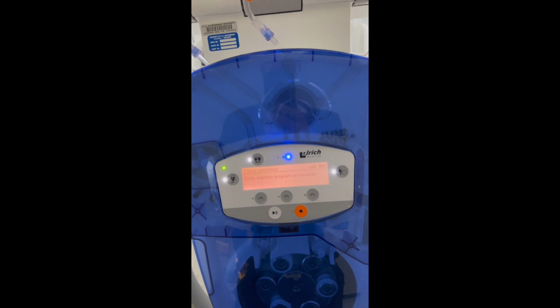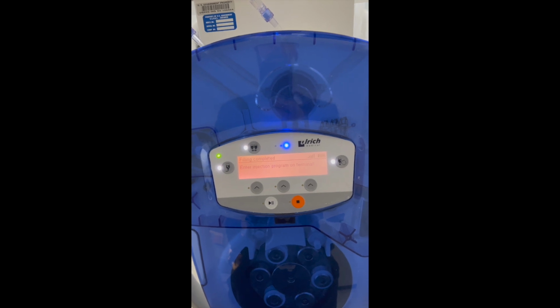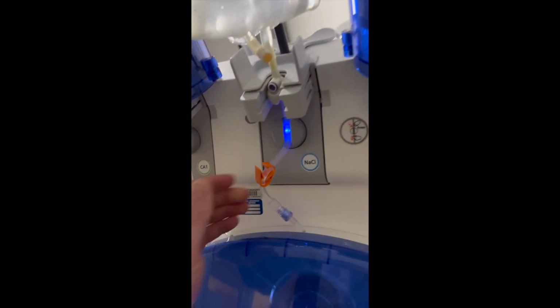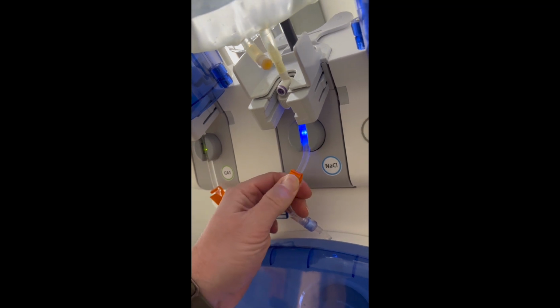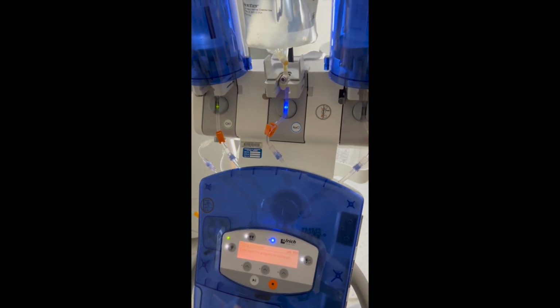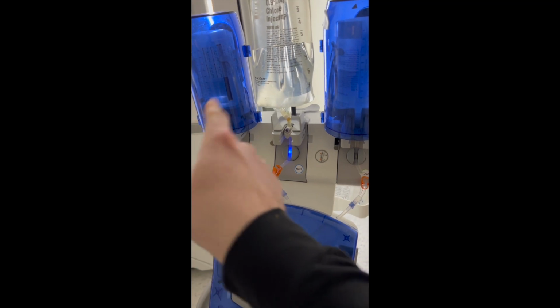Another issue you may see is you'll start it and it'll say something like air in tubing. And basically what that'll probably mean is whenever you set up one of your new, either your contrast media or your saline, you didn't unclip this part. And so what I do, I don't know if it's the necessary right way to do it, but what I'll do is I'll just shut it off, turn it back on, kind of restart it. You'll have to redo each one.